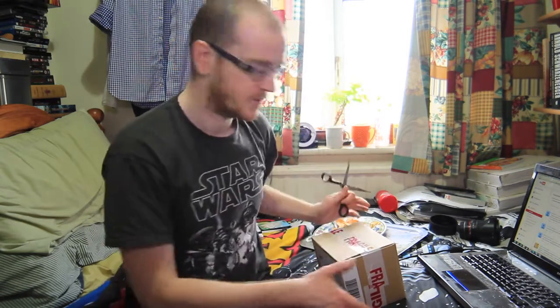Hi guys, Chris here back with another video. Using a bit of a different lens today — my 14mm — it's a little bit darker, so this is about the brightest I can get it. Today's video is going to be an unboxing video. I'm going to do a video on my Freestyle Libre, which came yesterday or the day before. I'm quite excited to open it up and get using it — just a bit of an unboxing and first impressions. Let's get into it.